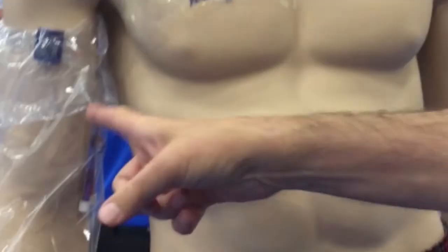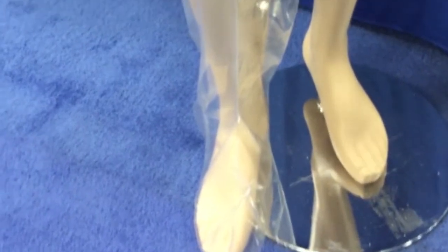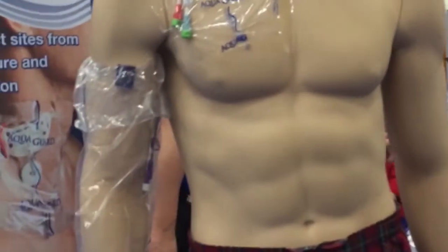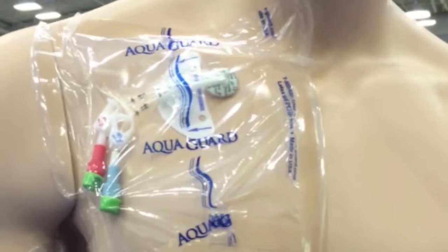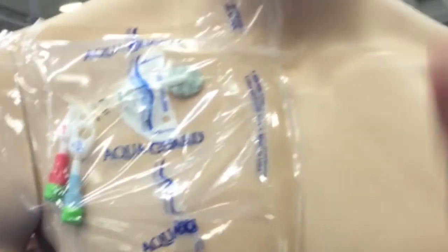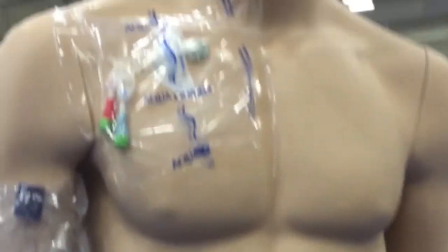You have the flat dressings that patients can do on themselves, but the thick line — the PICC lines, the central lines — need to be put on by a nurse. If somebody's at home they can put this on themselves. It's easy. It depends on your anatomy — if you've got something on your back it's harder, but your arm and your leg it's just self-applying. Yes, that's pretty cool.